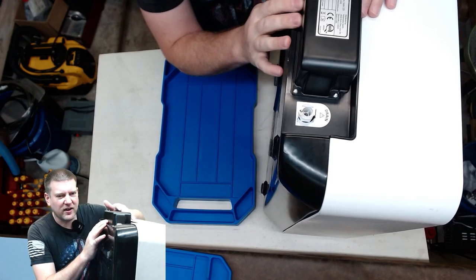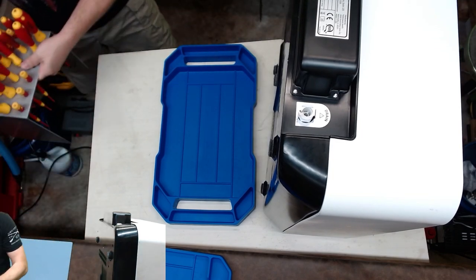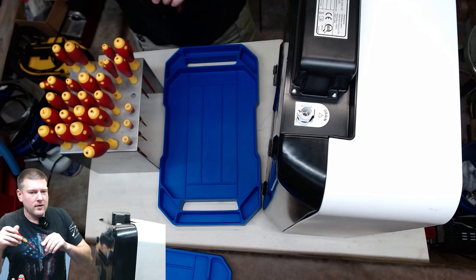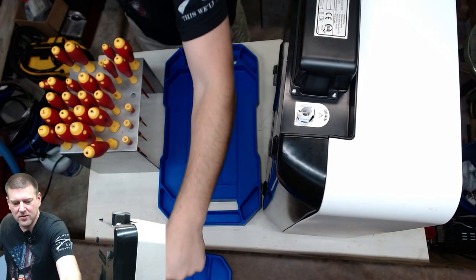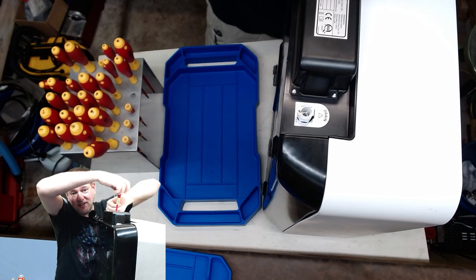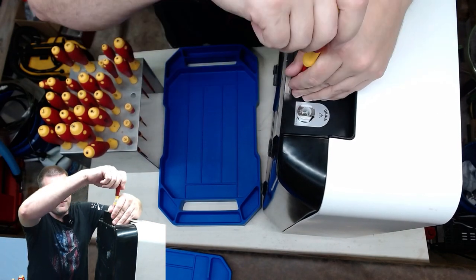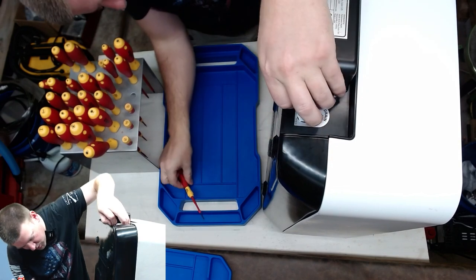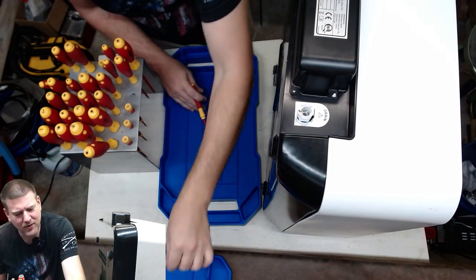This guy right here is suspect automatically — it's got little Allens. Let's go ahead and dish into my Allen driver set and pull this guy off. I want to start with this little cover right here — it's the KISS principle, keep it simple. I'm going to throw my fasteners up in this jolly blue pan. If I can see the leak from under this cover, easy repair — got to love easy repairs. But I have a feeling this one might have a problem with one of the tubes up and in here. I can kind of see some hose clamps and hoses.